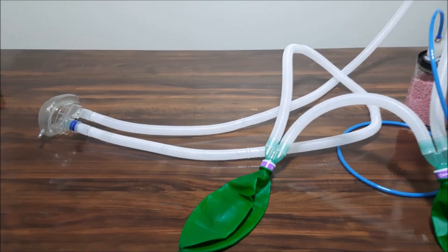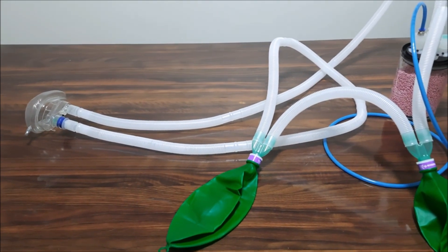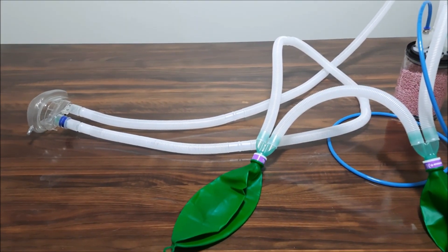The setup is very similar to one that you use in anesthesia. In anesthesia machines it is called a circle rebreather.